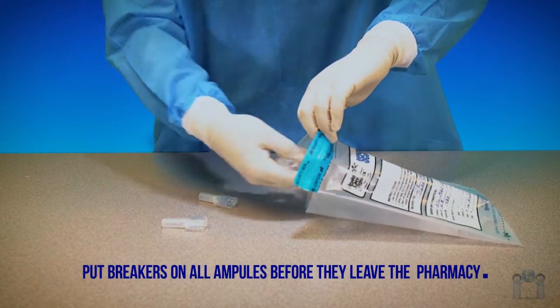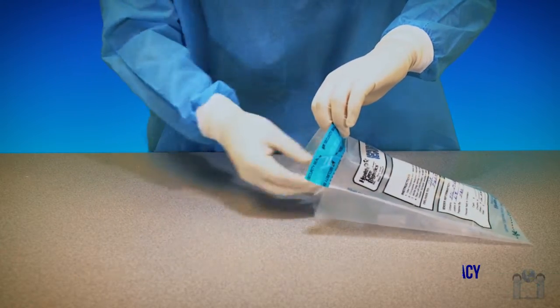Place a breaker on each ampule before it leaves the pharmacy to promote safe handling from start to finish.